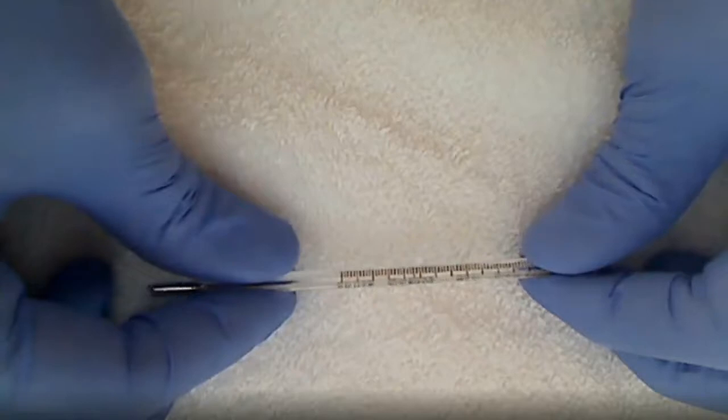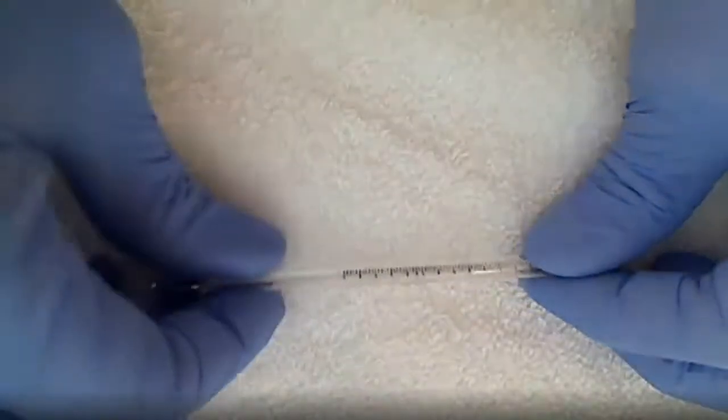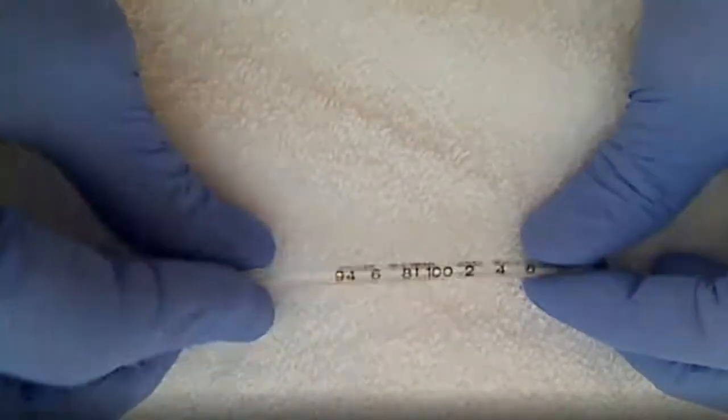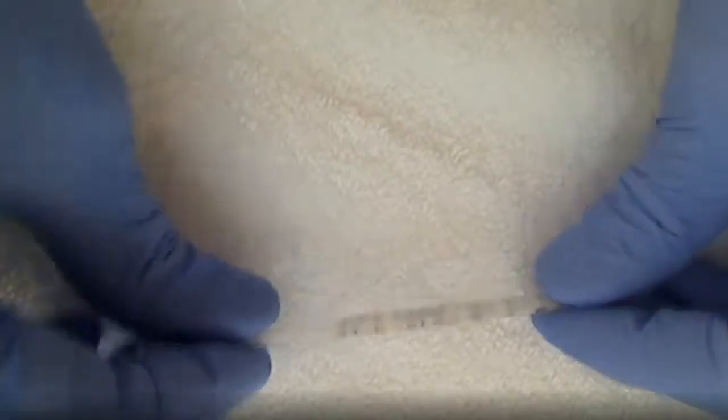Between the marks there's a little edge right here, it's kind of like a triangle. It's the edge of triangle marks numbers and we're just gonna kind of rotate it back and forth.